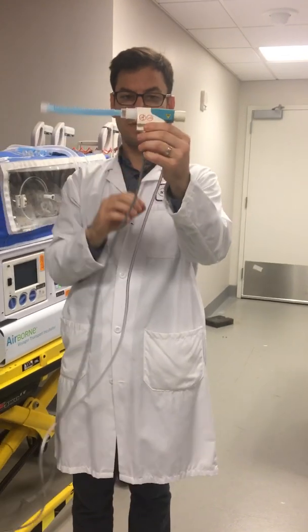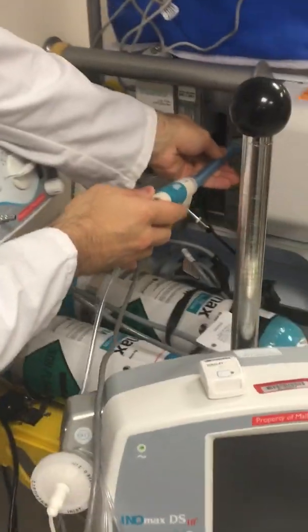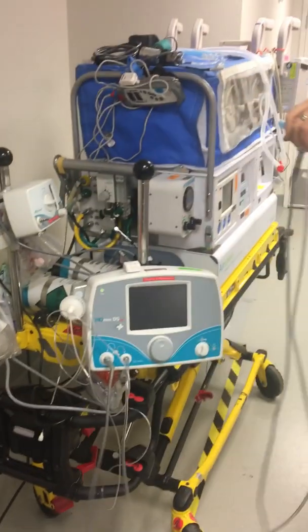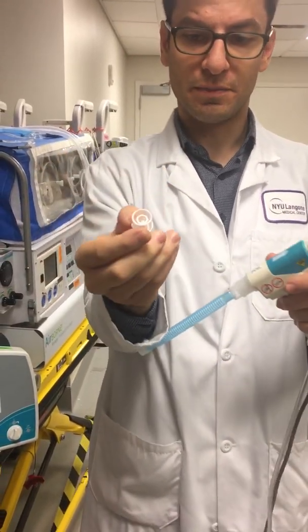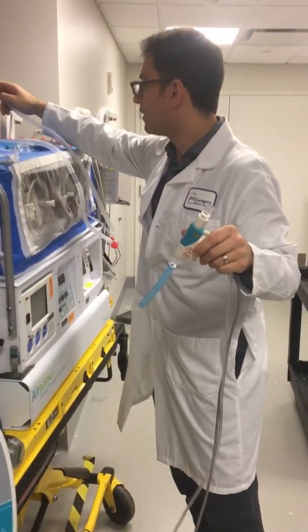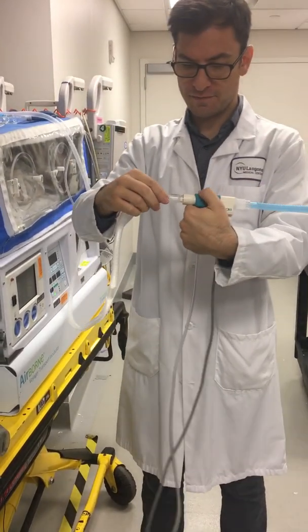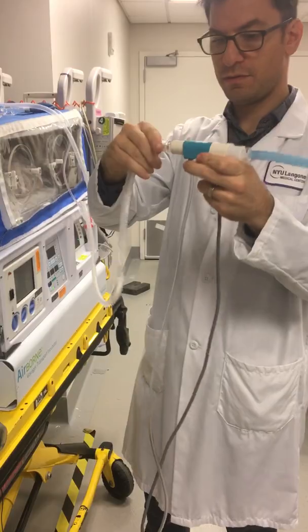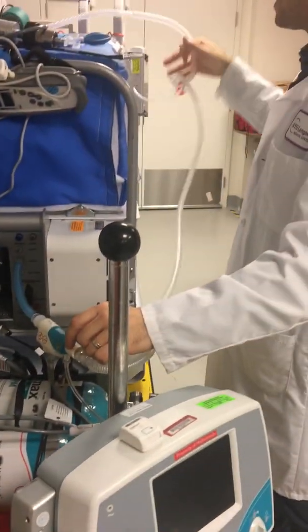This goes right into the back — following the arrow, the path of flow of the nitric oxide towards the patient. This piece connects right to the back of our patient port. So now it's going from the ventilator into the circuit. To connect this to the circuit, we use our first connector, which has a little inner tube that's useful. We put this in here, take our inspiratory limb for our circuit, and the inspiratory limb goes right up and over that inner piece inside the adapter. Now we're delivering nitric oxide into the circuit.